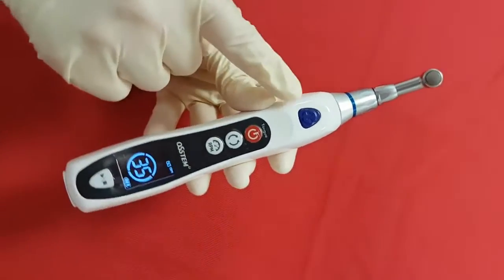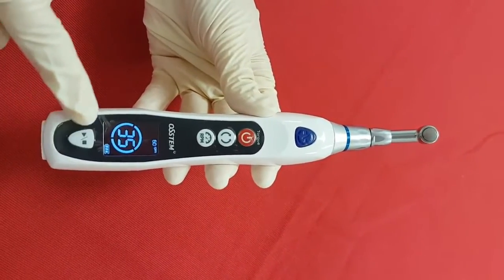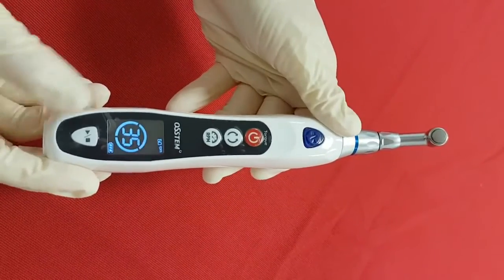There are two operating buttons here, on the top and the bottom. This white button is especially for the posterior area — the motor runs only when the button is being pressed.